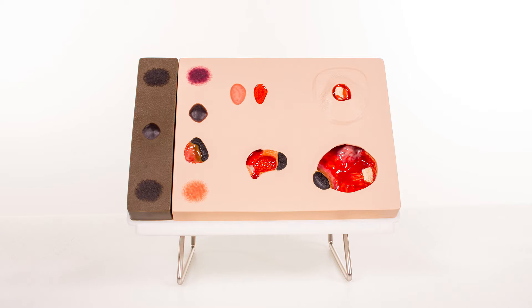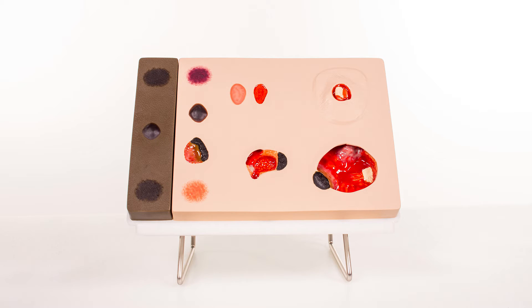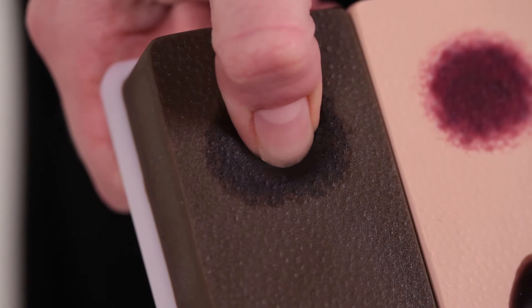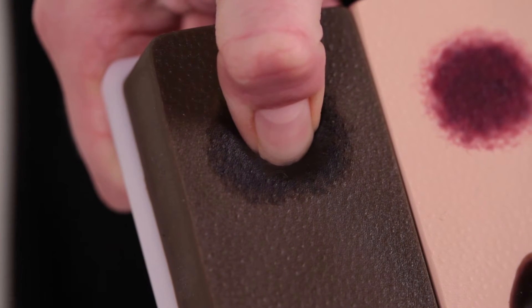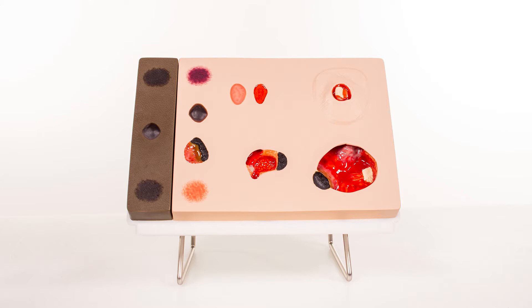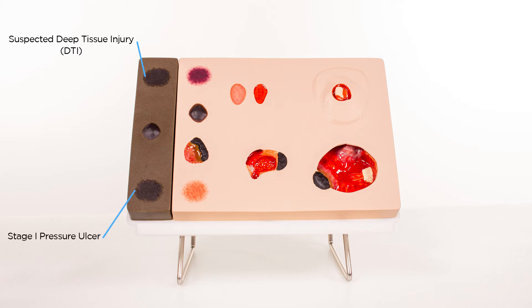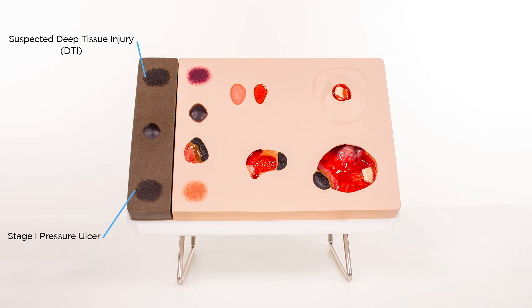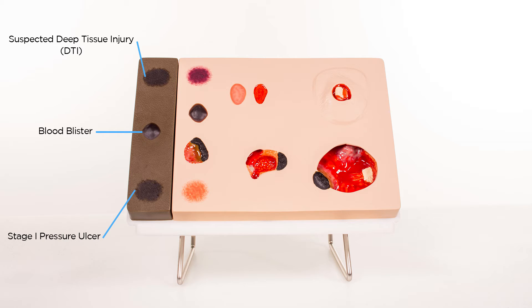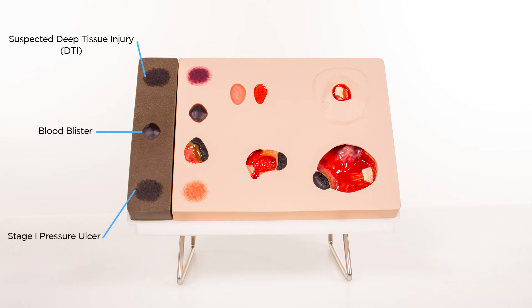The first wound on the top of the darkly pigmented section and the bottom wound appear to the eye to be the same. But when palpated, the condition at the top has a soft, boggy feel, which would indicate a suspected deep tissue injury, and the bottom wound a stage 1. The center wound is a blood-filled blister. To the right of these are the same wounds presented on a lightly pigmented individual.